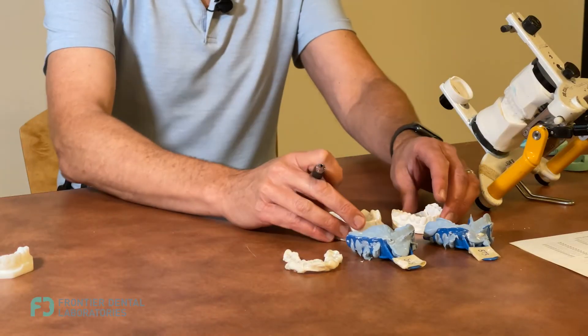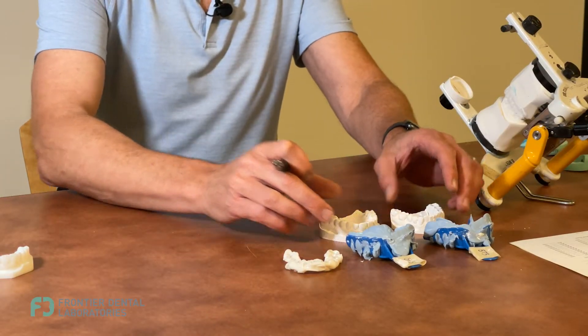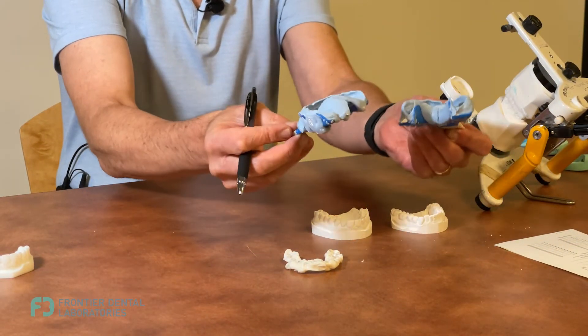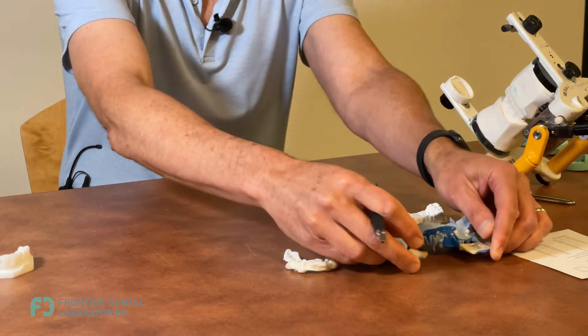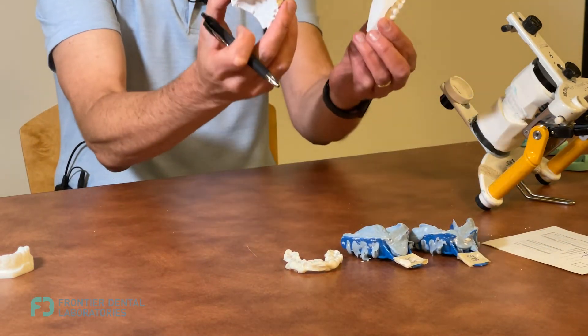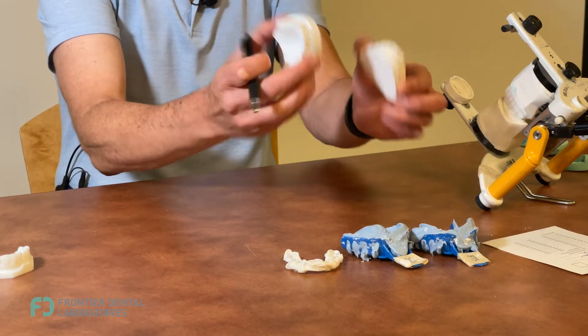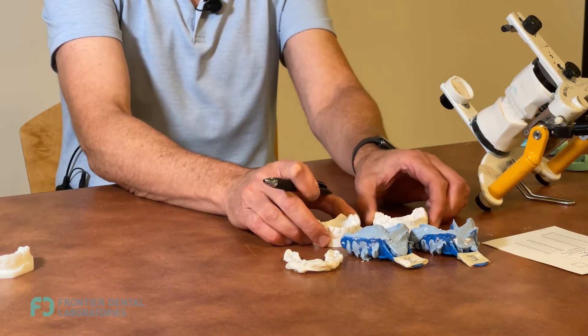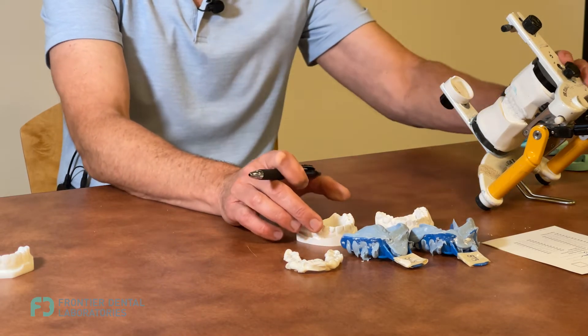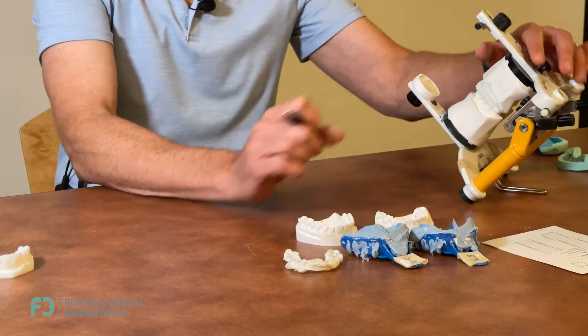Basically, we want to get some good models. We'll mount the impressions up and we also duplicate a baseline impression, so you have a baseline and a diagnostic design.